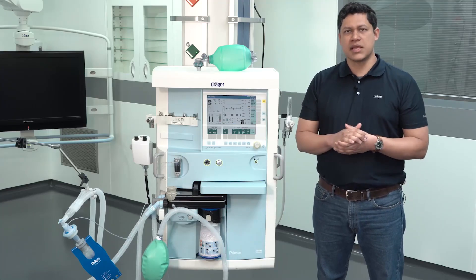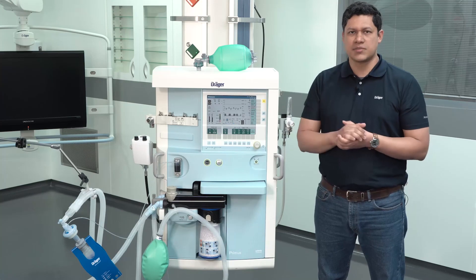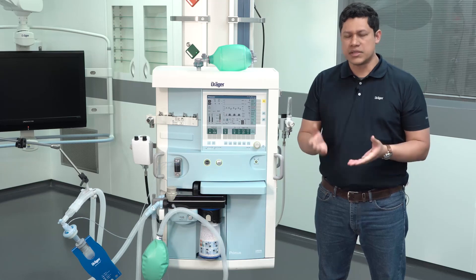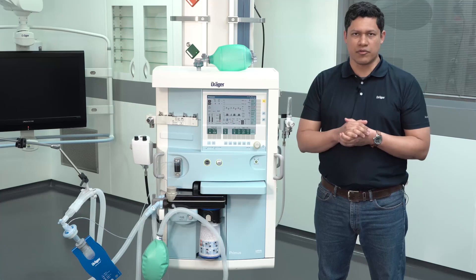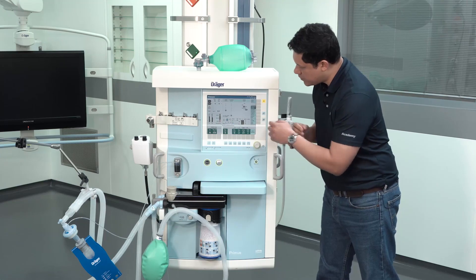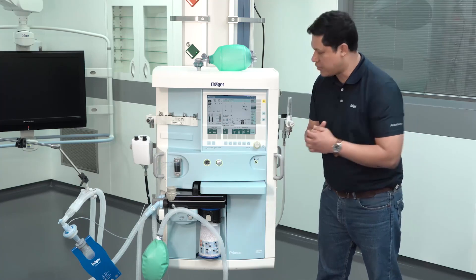If possible, always stay in the vicinity of the anesthesia device. The alarm management design assumes the user is always in proximity of it. When this is not possible, keep in mind that the maximum volume level of the alarms must be set. To do so, go to the configuration button, confirm the alarm volume, and use the rotary knob button to take it to the higher level.